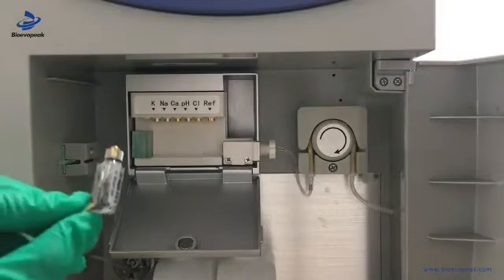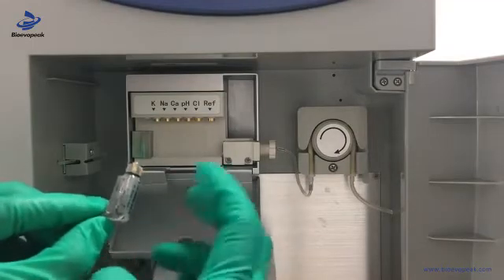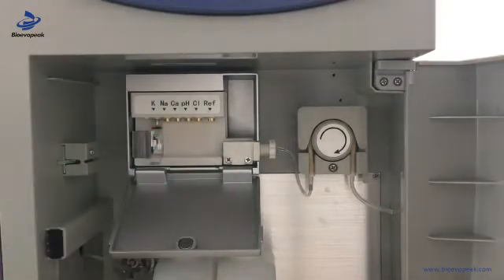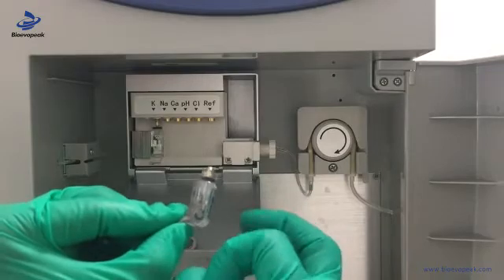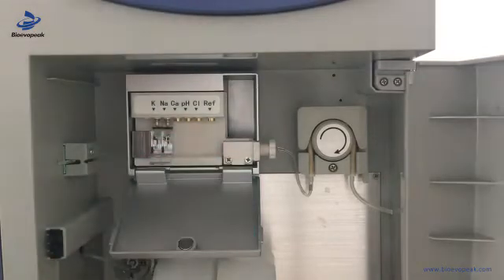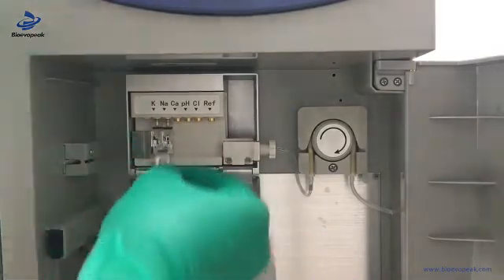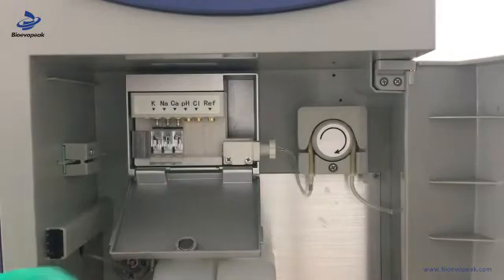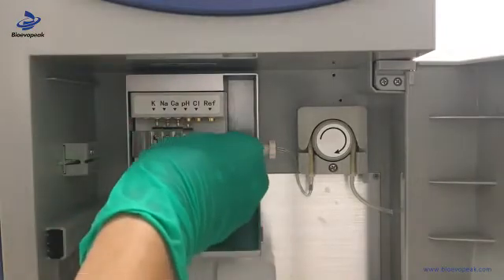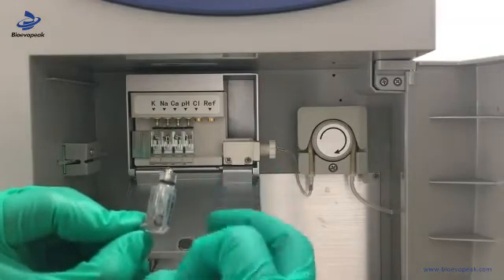Now we install the electrodes. We hold the electrode and use our finger to flip the bottom of each electrode. It should be installed according to the sequence marked above it. Since every move or trembling can introduce bubbles, we have to remove bubbles before every installation for electrodes. We need to do this for each electrode.